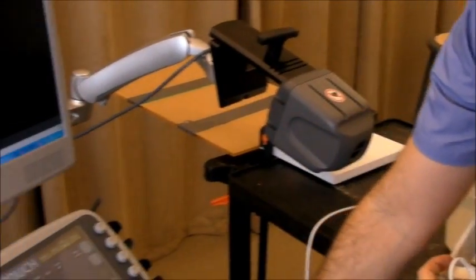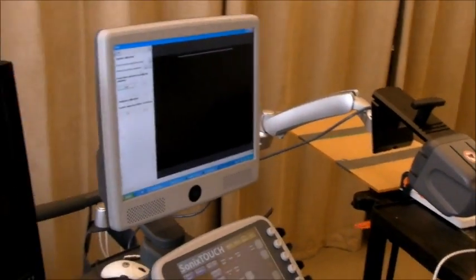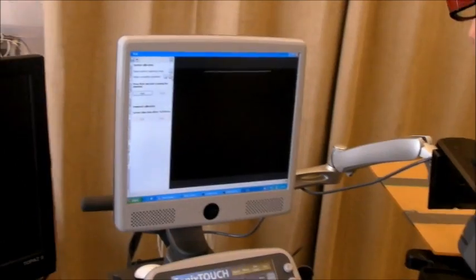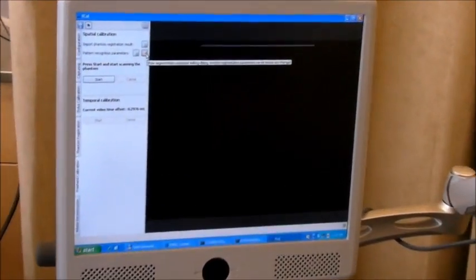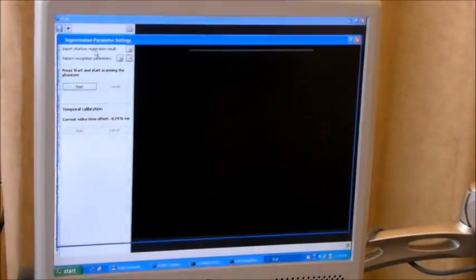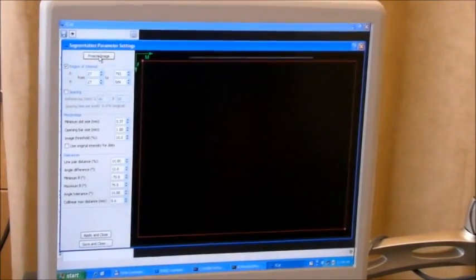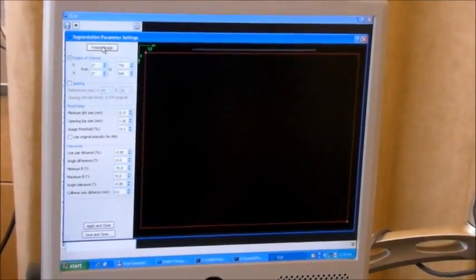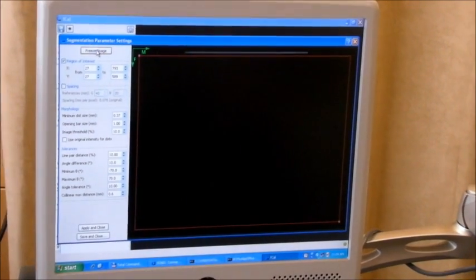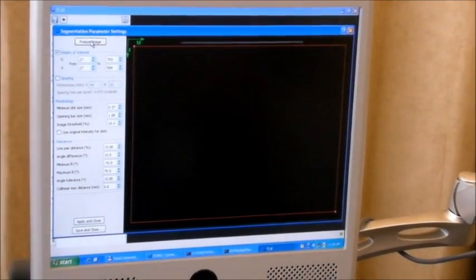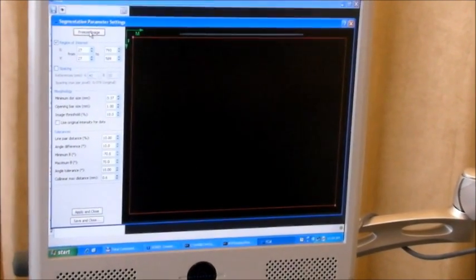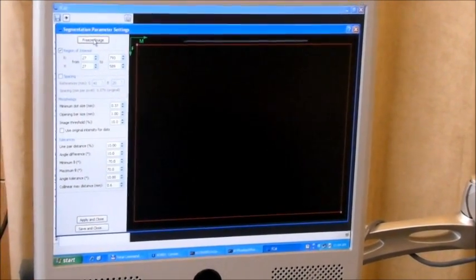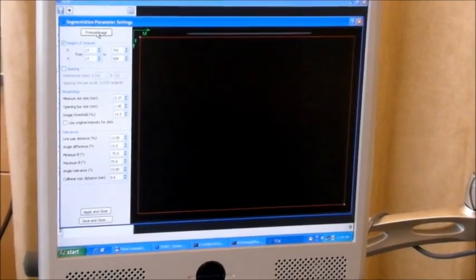For people who use it for the first time, it would be useful to check the segmentation parameters. I'm going to show you how. I click the edit segmentation parameter button on the toolbox.